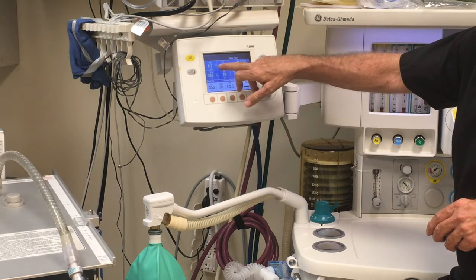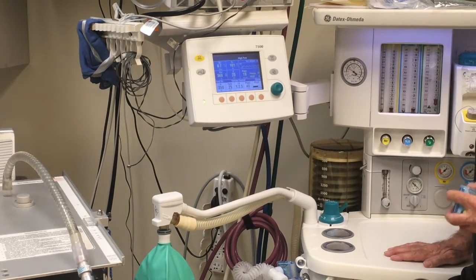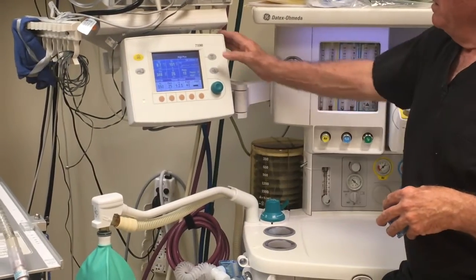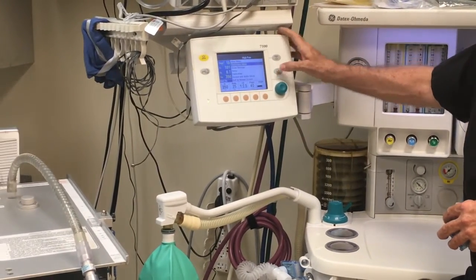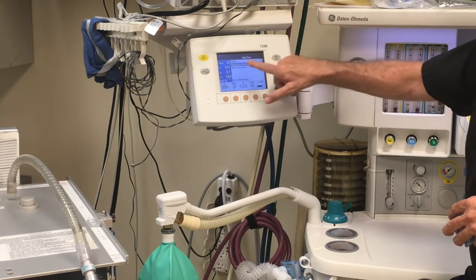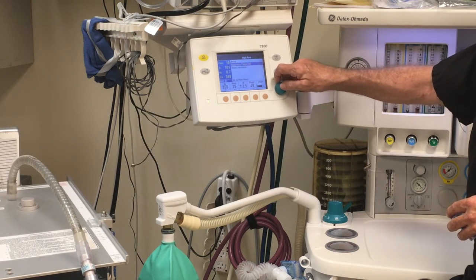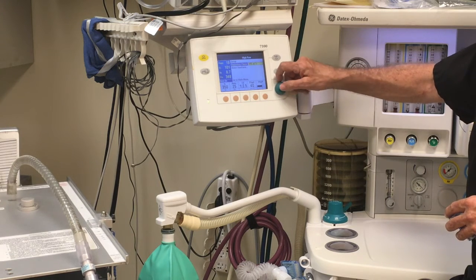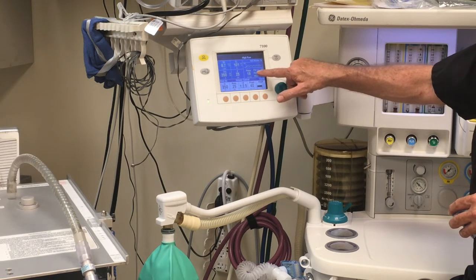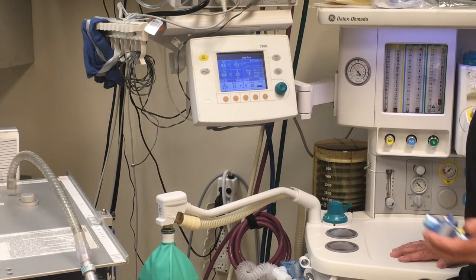You want to watch your minute volume, your tidal volume. Everyone knows how to manage your FiO2, the combination of using your oxygen and your air. And what you want to do as well is watch for your plateau pressure. You can do that on this old Omeda machine by setting your inspiratory pause, turn it on to about, say, 10%. You don't need to do this continually, but you do want to make sure that your plateau pressure is less than 25.